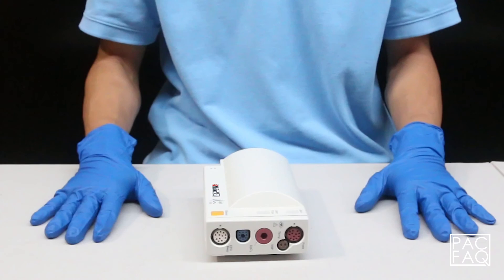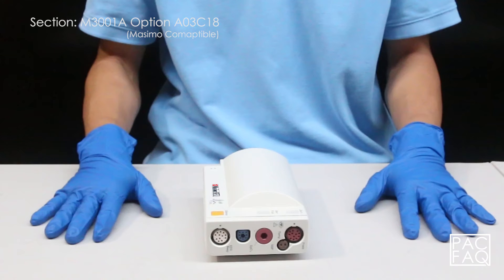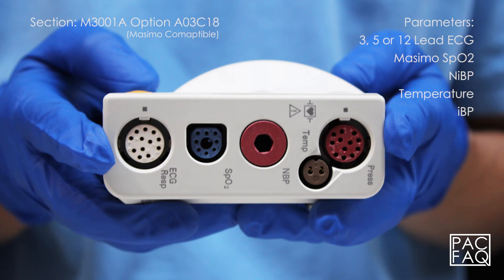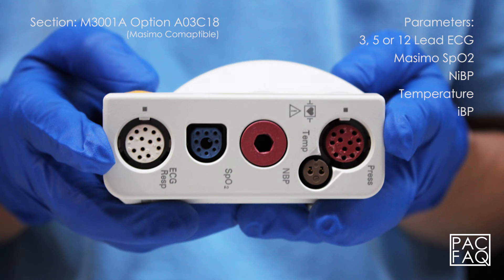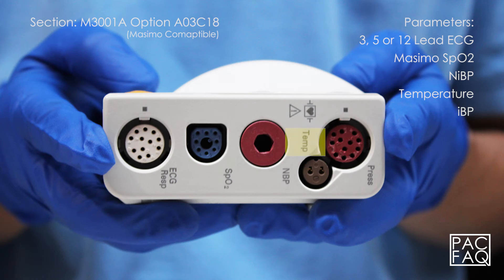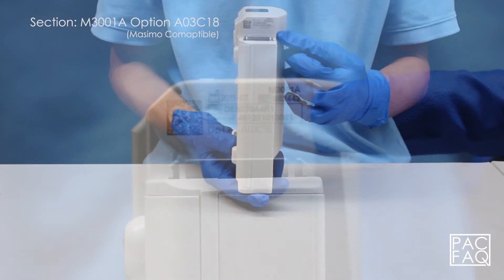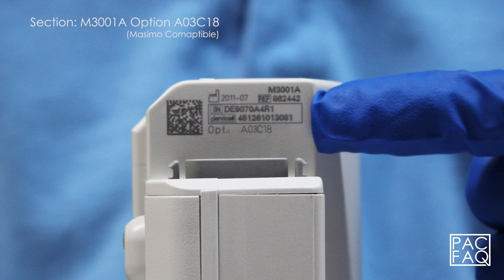Here we have option A03 C18. This unit comes with parameters 3, 5, or 12 lead ECG, Masimo SPO2, non-invasive blood pressure, temperature, and invasive blood pressure. The product identification and serial numbers are located on the corner back side of the unit.